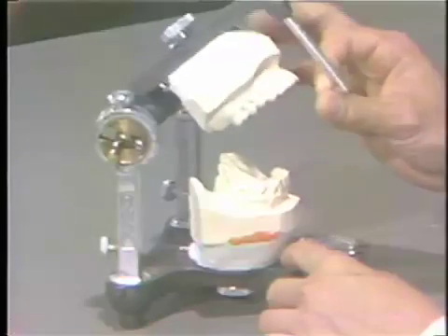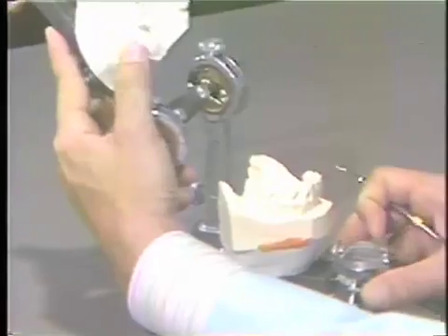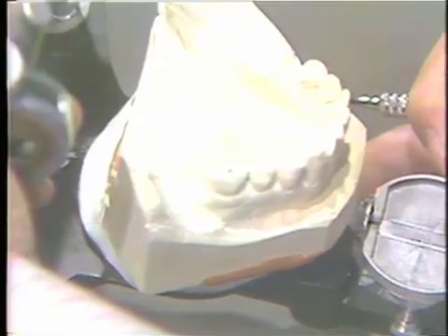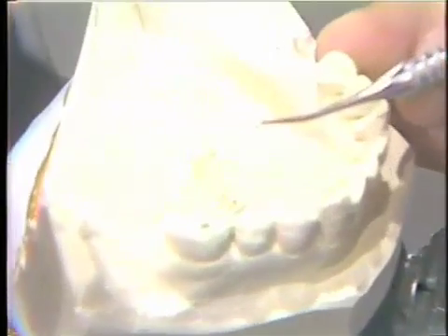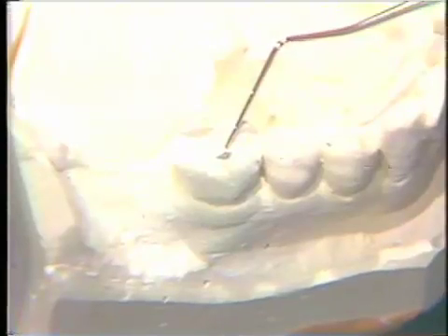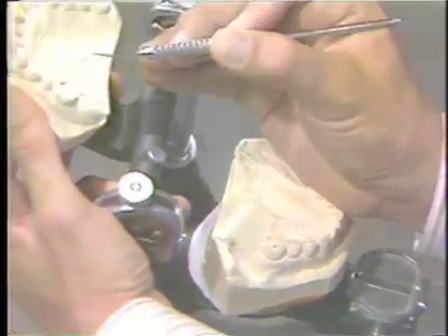The cast should have been checked with the mouth to make sure that the mounting is accurate. One of the first things we would do is double check the first contact in the mouth against the first contact on the articulator. This should be done with the patient in the chair, and it has been done for this particular set of casts. The centric relation prematurity has been verified with that of the patient. In this particular case, it is on the lingual incline of the buccal cusp of the first molar against the maxillary buccal incline of the lingual cusp.